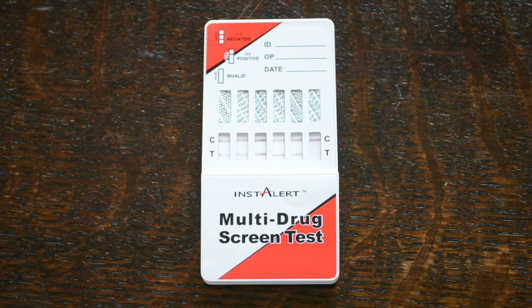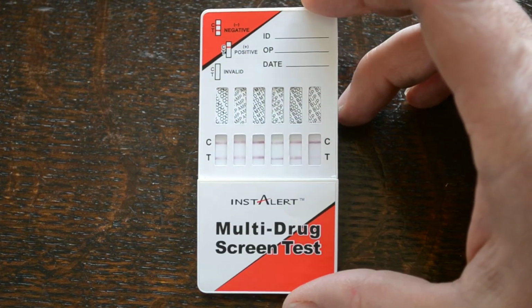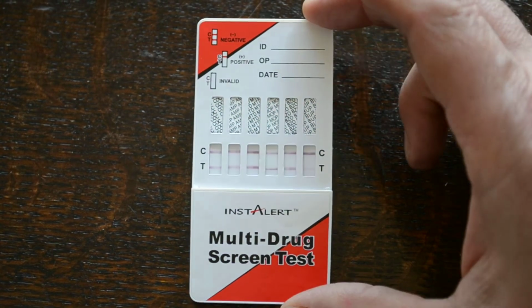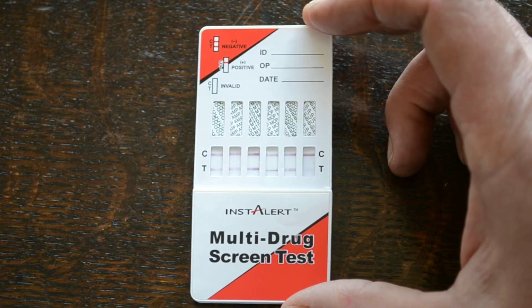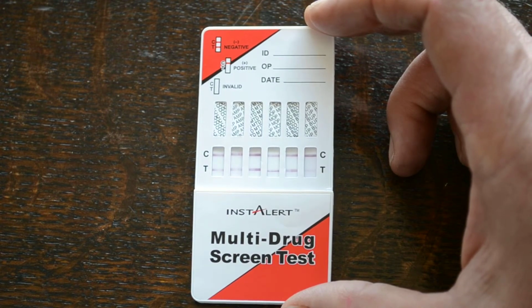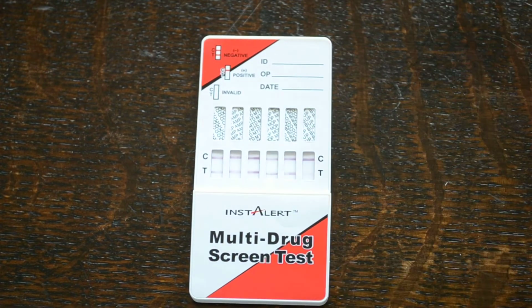So there you go, that's the InstAlert 6-panel drugs of abuse urine test demonstrated for you. I hope you can see that the actual results are very easy to interpret, and the other thing to emphasize is you can see perhaps on this bupe test membrane here, the test line there is much fainter than the next one to it, the benzos. You must not try to interpret anything by that. Any test line, whether it's thin, faint, whether the colour is very undiscernible, as long as there is a test line discernible there, that's a clear negative result.